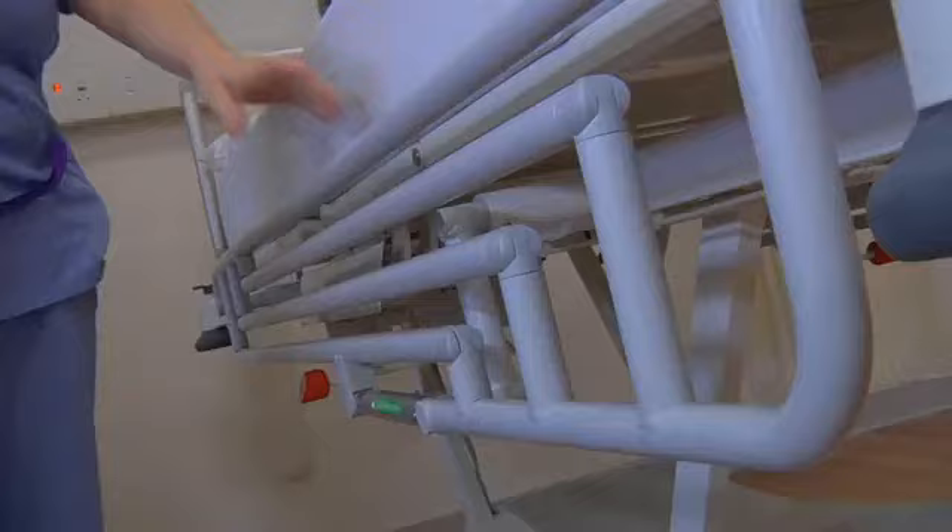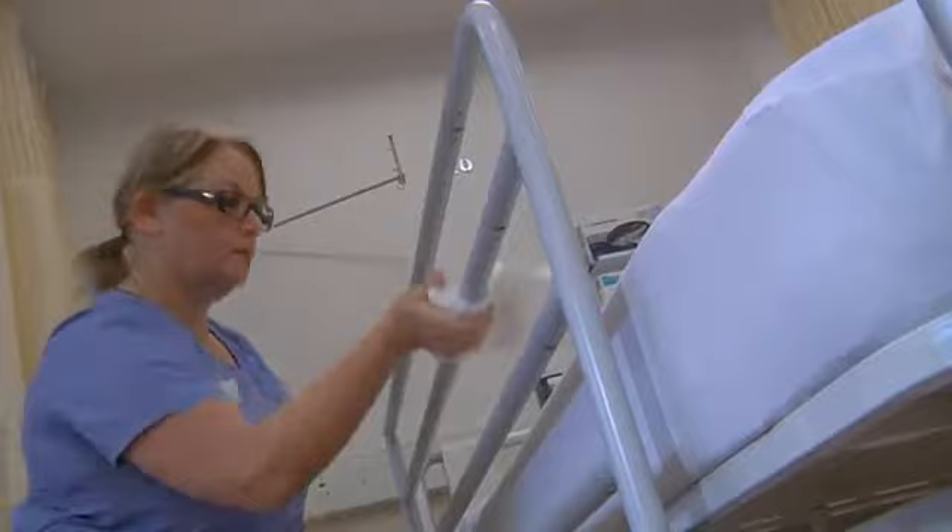In addition to curved edges and corners in the design, the M9's new horizontal bar side rails are gas assisted for easy operation, and are also very quick and easy to clean. And the M9's design improvements don't stop there.